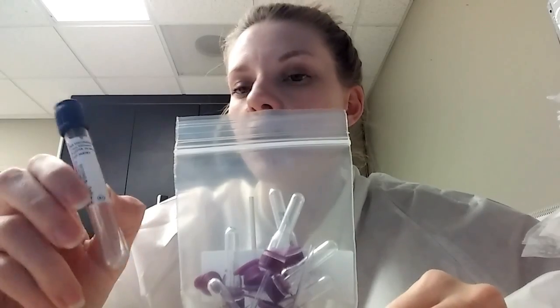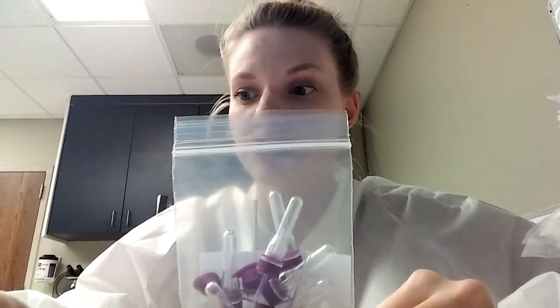These last tubes look like the tiny little purple guys but they have tubing with them. I believe these are for lead blood analysis on children. Part of the well child checkup is checking for lead to make sure they're not eating paint or something like that. They do these off finger sticks and use this little tubing to go down through the middle to make it easier, because you can't do a heel stick on a kid unless it's a teeny baby. These are also treated to be lead-free — unlike the other tubes except for the adult version — so the lead you get is the actual lead with no contamination.